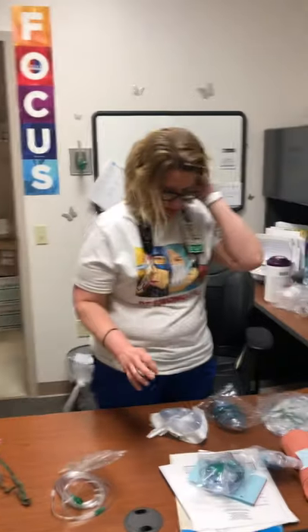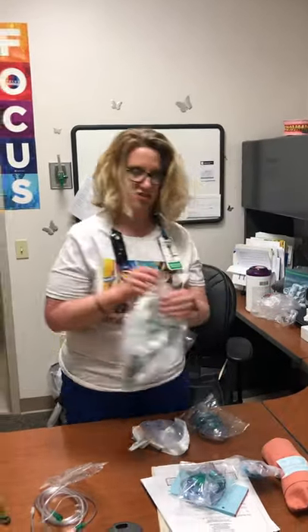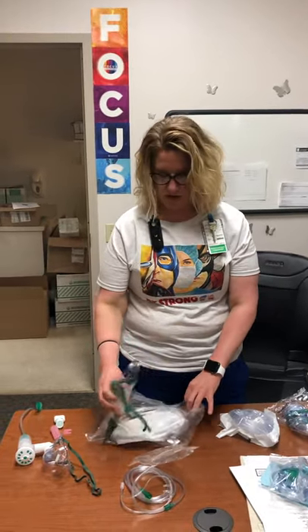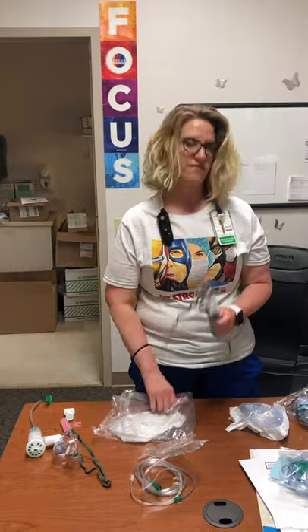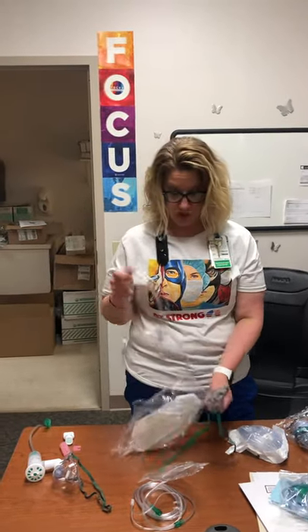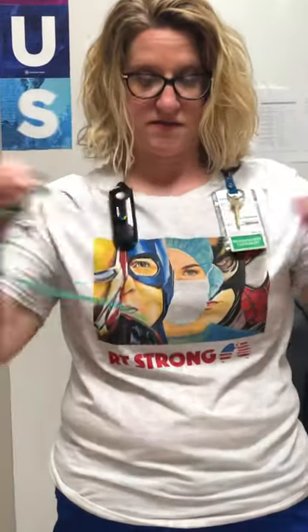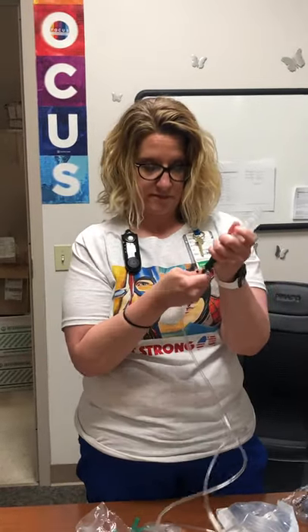The next one is the venti mask. You probably don't use this a lot. What RTs use it for right now is to transport a trach patient. We pull this mask off — it comes off like this — and put a trach mask onto here. Then it hangs like this on the trach. Your oxygen tubing comes in the package and goes right onto the end.